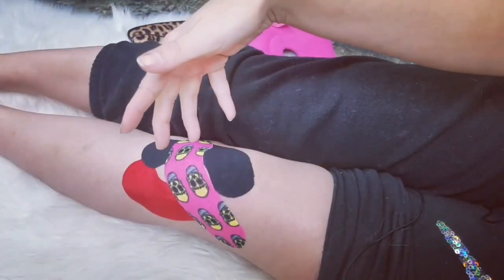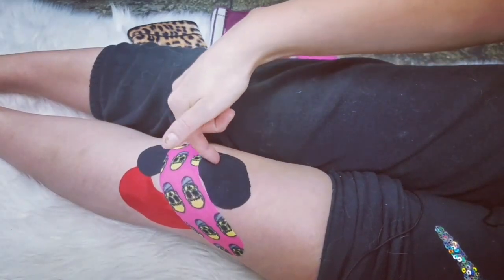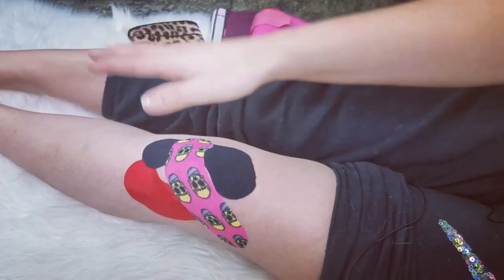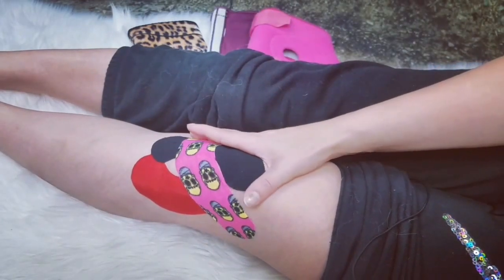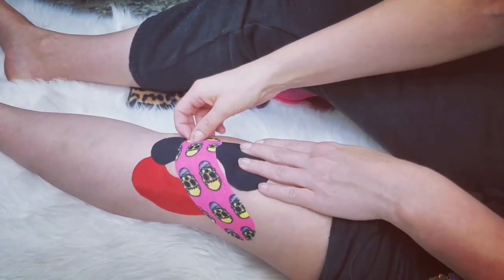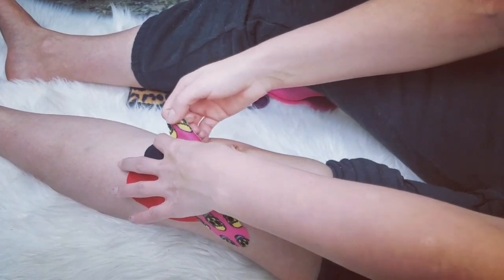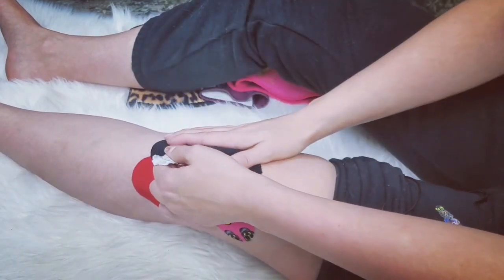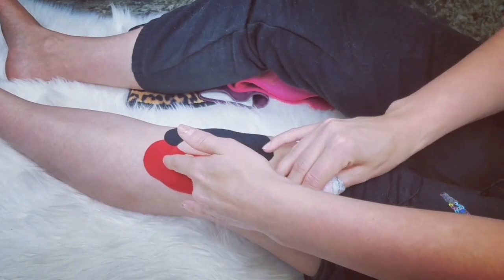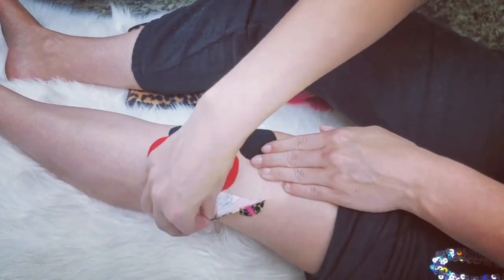Let's talk about tape. Here are those three brands — I have Nordic right here in red, Voodoo of course with the skulls, and this black one is copper-infused, off Amazon but I don't remember the brand. I usually soak in the bathtub to remove these because they are so sticky. Rule of thumb: you don't ever really want to tape over tape because it doesn't stick very well and you find you're wasting tape. I'm going to carefully remove the Voodoo Tape here. The Voodoo Tape is the easiest to pull off, but don't let that scare you because it does stick very well.